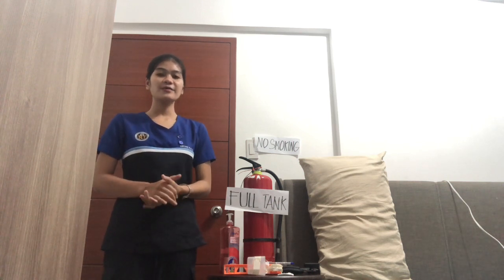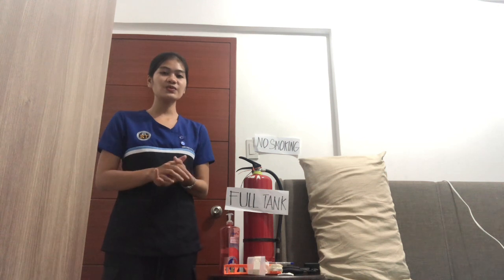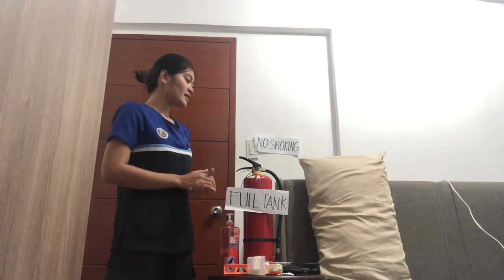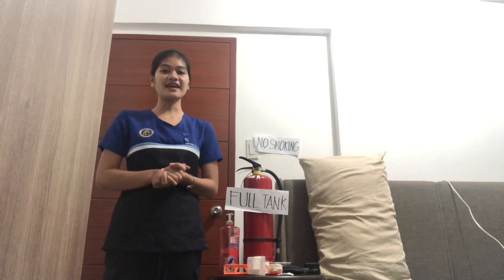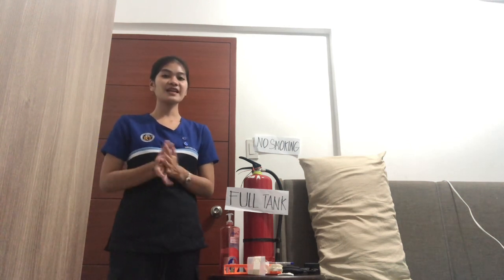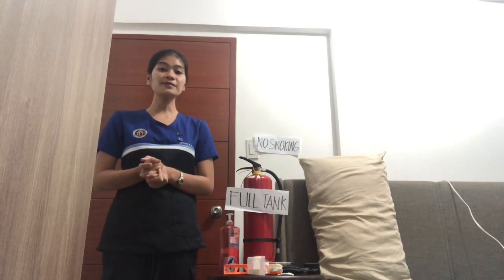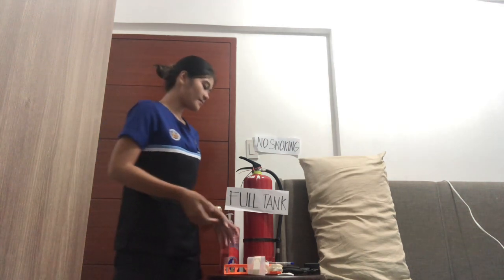After gathering all the equipment, we will crack the tank. This is to ensure that the tank has oxygen and also to remove the dust accumulated in the thread of the cylinder outlet. Then after that, we connect the flow meter to the oxygen tank using a monkey wrench.